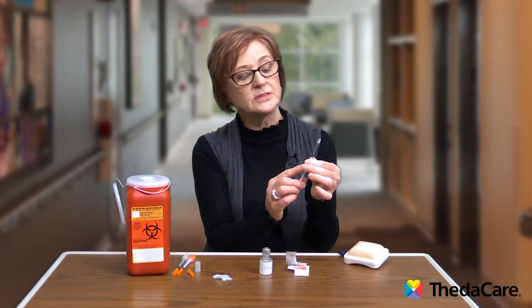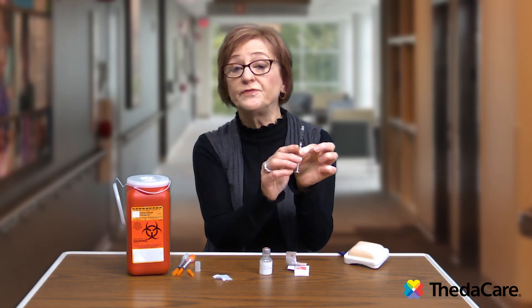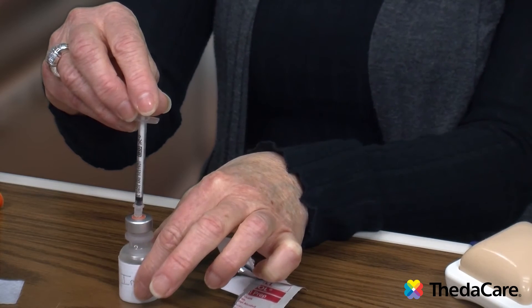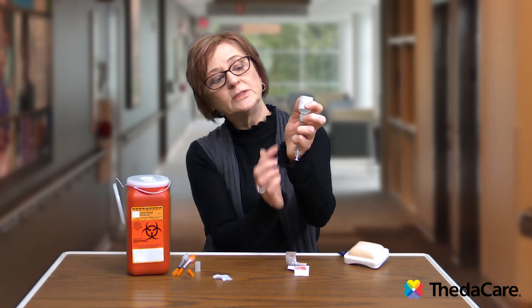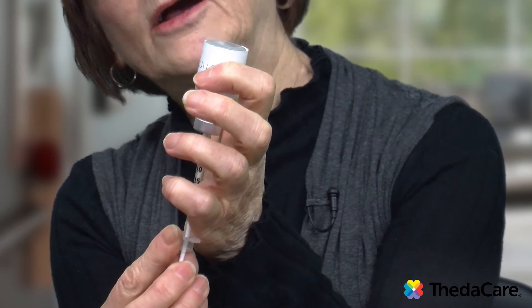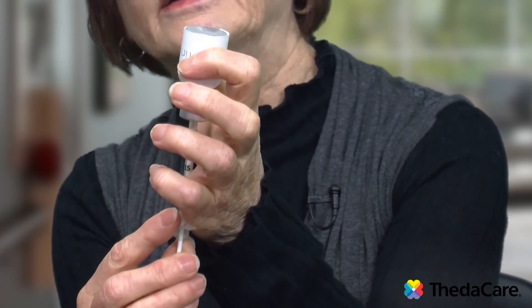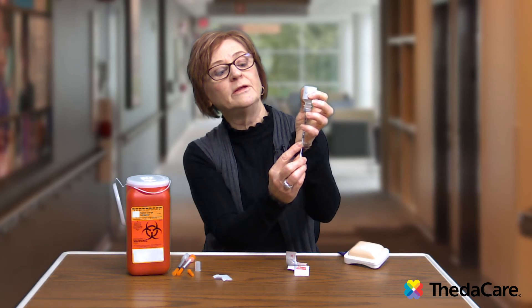Let's practice with 15 units. Draw air into the syringe, lining the tip of the plunger up to the marker that says 15. Then take that needle and push it through the rubber stopper of the insulin vial, and push that air into the bottle — that makes it easier to draw your insulin out. Turn the bottle upside down and hold the vial and syringe with one hand so your other hand is free to pull back on the plunger. If you notice air bubbles, give it a good push back in. Usually that will clear any air, but if bubbles continue, repeat that step until you don't see any air bubbles as you slowly pull the plunger.